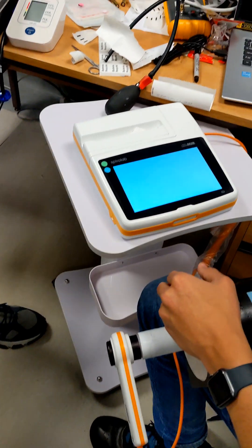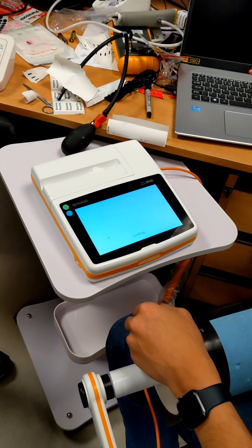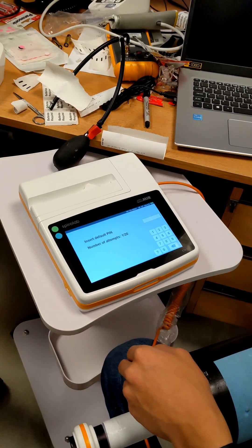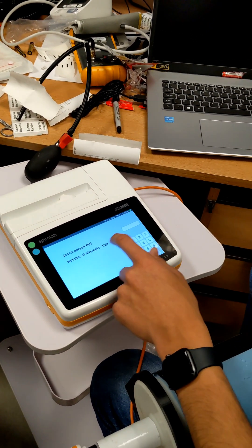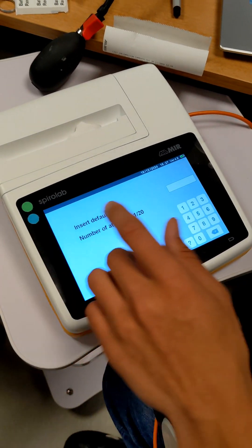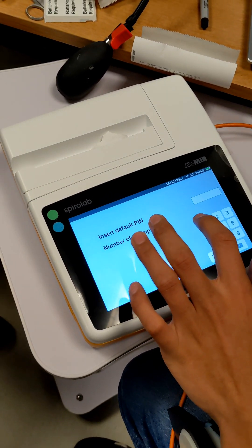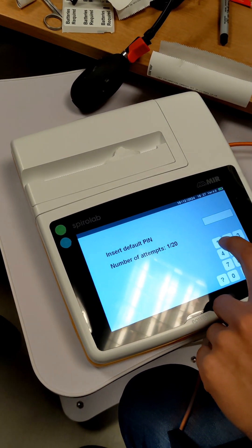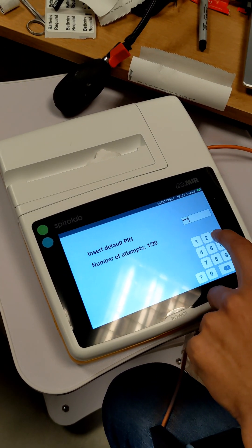Well, step by step then. Turn the machine on. Passcode. What's the passcode? You enter the normal pin 1223.